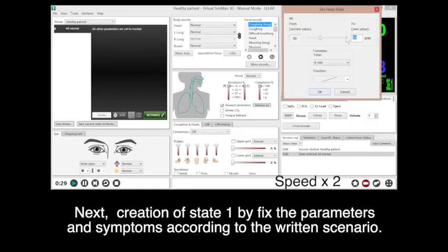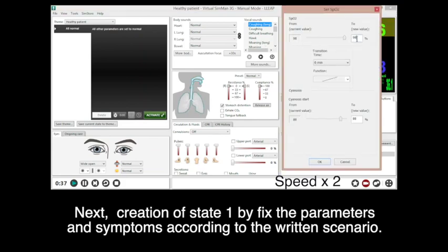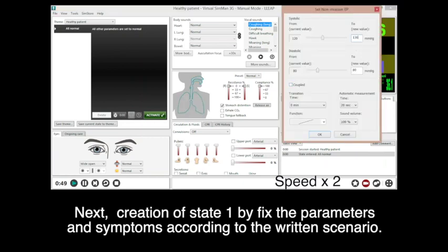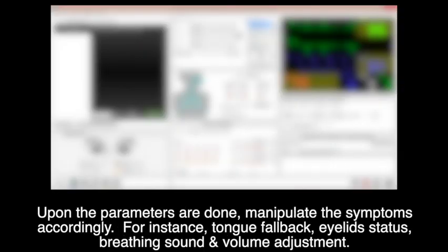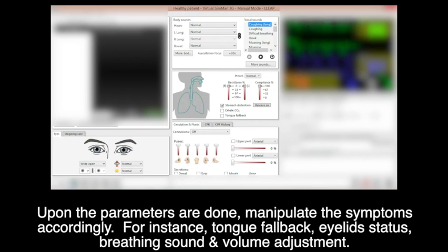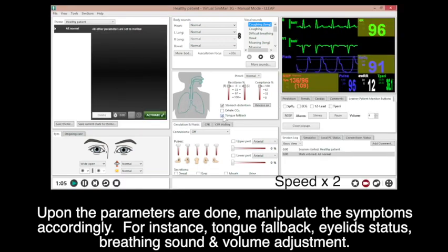Next, creation of State 1 by setting the parameters and symptoms according to the written scenario. Upon parameters being done, manipulate the symptoms accordingly. For instance, activate tongue fallback, eyelid status, breathing sound, and volume adjustment.